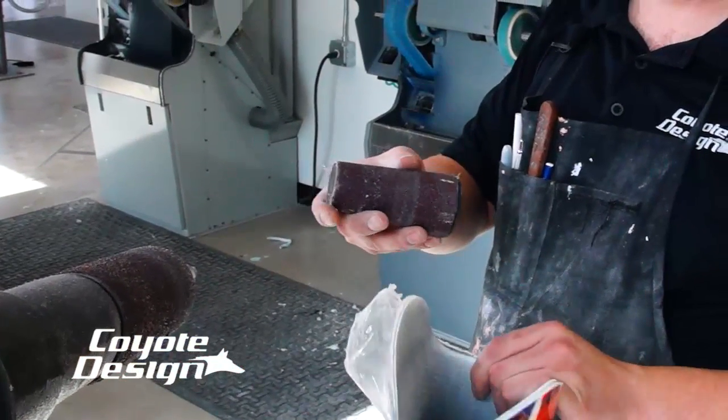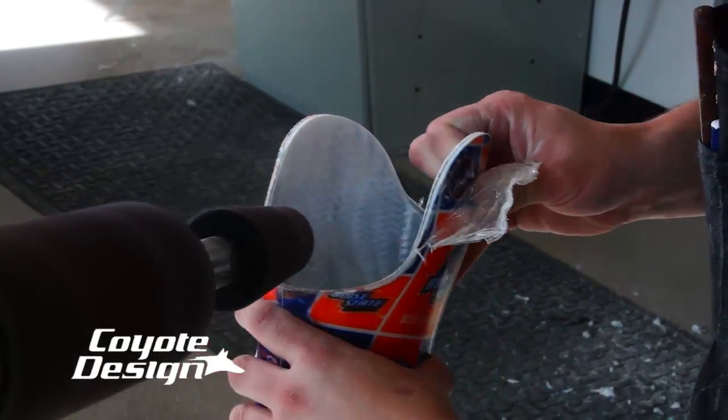I use the rough cone — the roughest cone you can do. Go ahead and take that down to your trim lines.